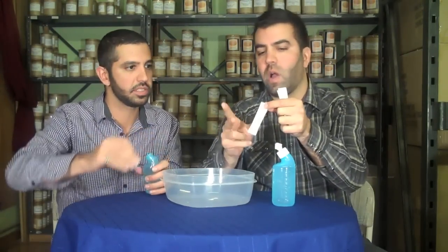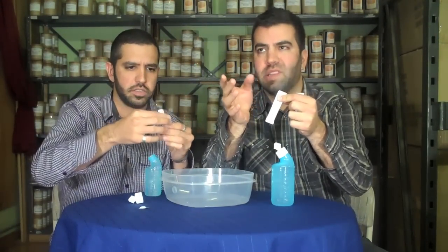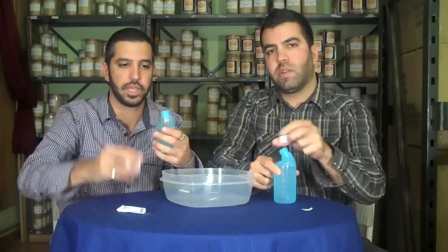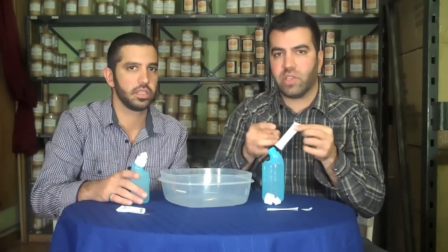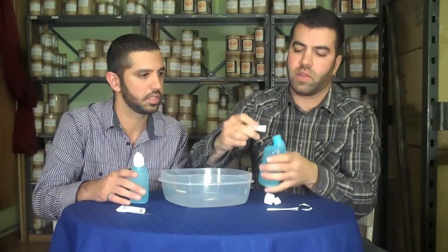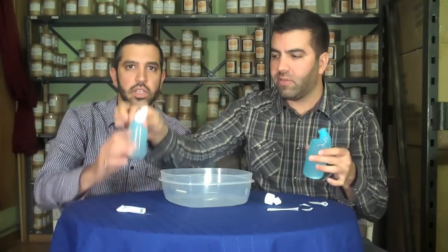The other nice thing about Nasopure is that the salt that comes with it — when you buy a new one as well as refills — is in these individual sachets. Normally I'm not into sachets and individual packaging, but the great part is it's pre-measured exactly for this size bottle. There are two ways to do it: you can do one sachet, which makes an isotonic solution — the same saltiness as the body. You need at minimum an isotonic solution to avoid burning. People think salt burns, but lack of salt burns too because your body already has salt in it. I actually prefer mine at hypertonic — more salt than in the body naturally — because I'm an allergy sufferer. I put two packages in for the large bottle, or one packet for the small bottle.